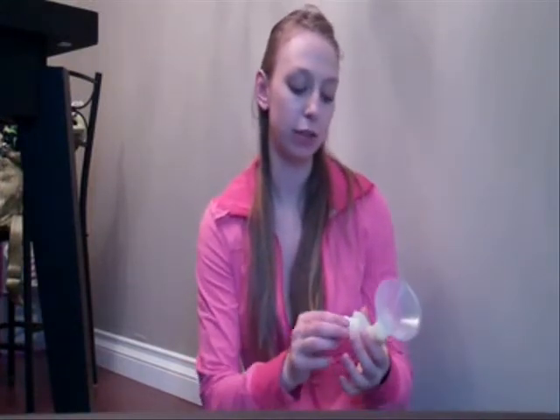I just wanted to do a quick review because when I was shopping for pumps, I really wish I would have just sprung for at least the Medela Swing. There's a significant difference in price compared to higher-end models, so I think this is a great option if you're just pumping. I pump about once a day now, and for a once-a-day pumper this is great. I've had it for almost three months and it's worked out great, except for having to buy new tubing — which is only like $11, so not a huge deal.